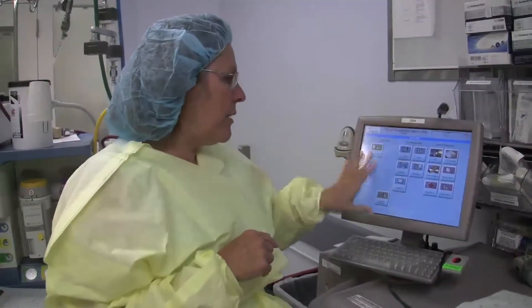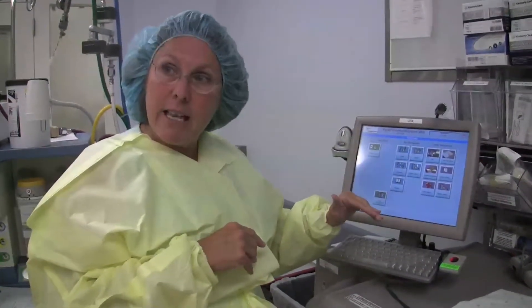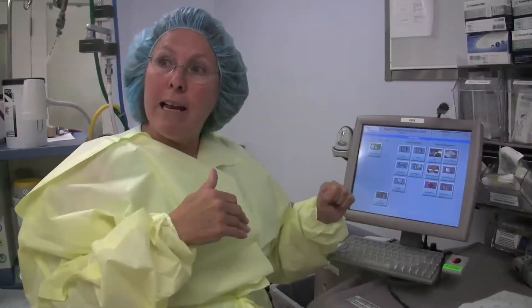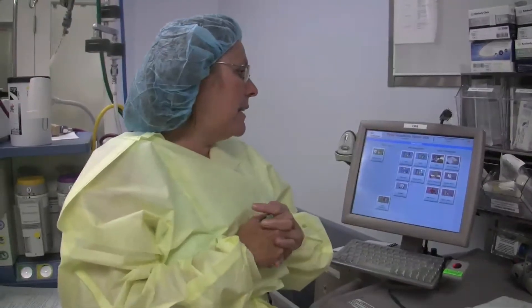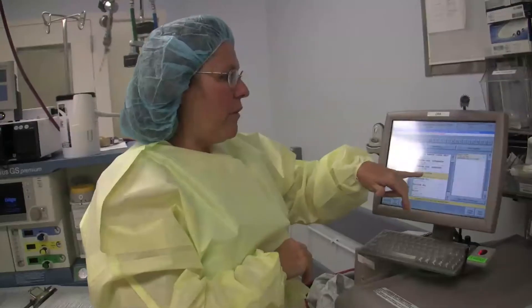I'm going to choose patient cases, and it's going to give me a list of the patients that I have today. I'm going to choose the appropriate patient and start removing medications for them. That gives documentation of what the patient has gotten, and it also gives an inventory and keeps track of exactly how many narcotics were removed.